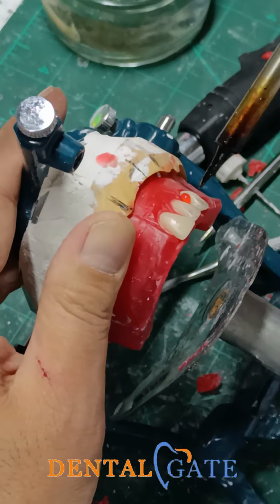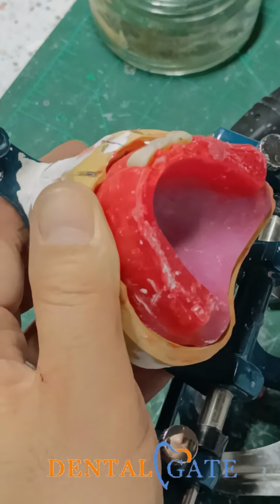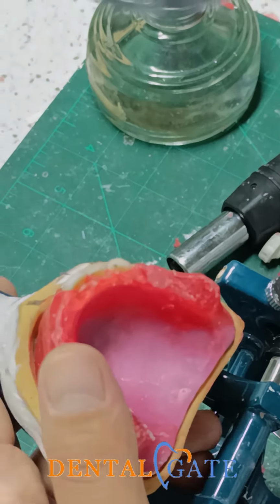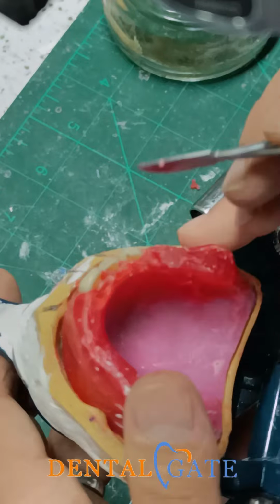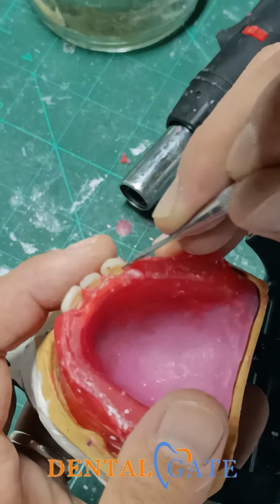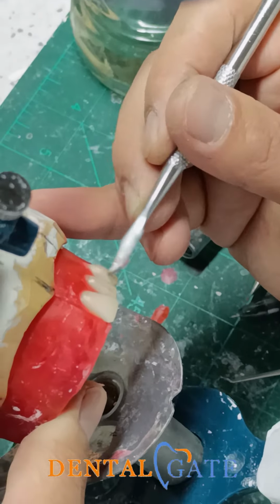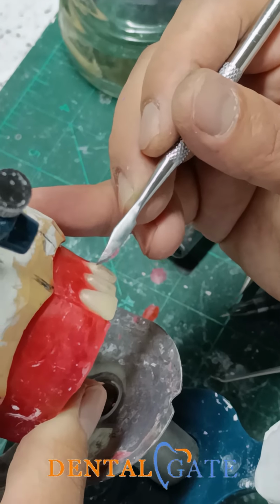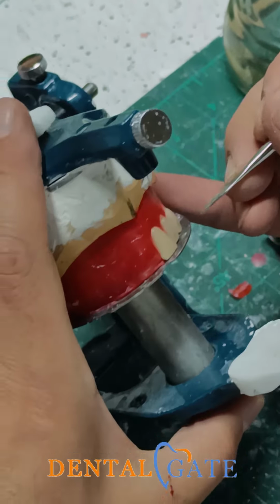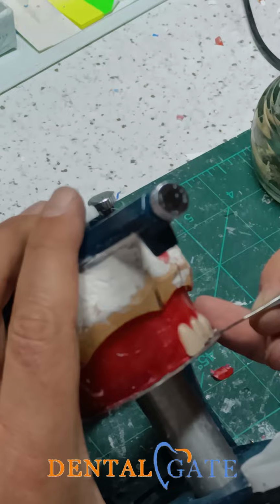You can see the canine now. Provide a corner segment to the anterior. So this slope is within the lateral. I will make an adjustment to the canine. So only this surface should be seen in the labial aspect, okay? So make a check. The contact, the tip, should make contact with the table, okay?